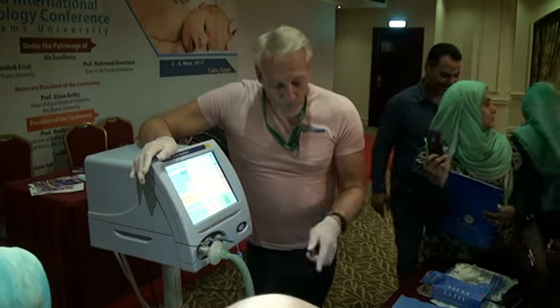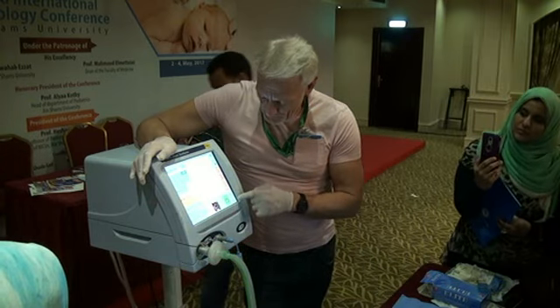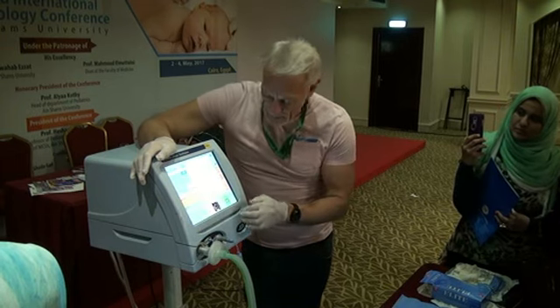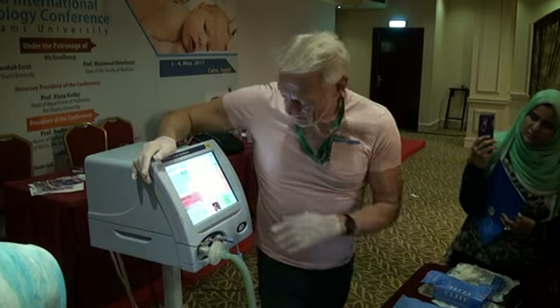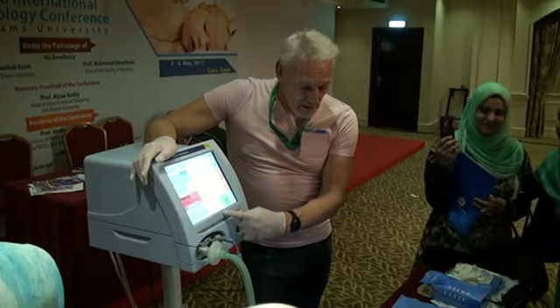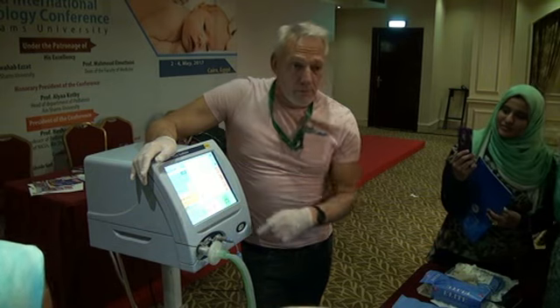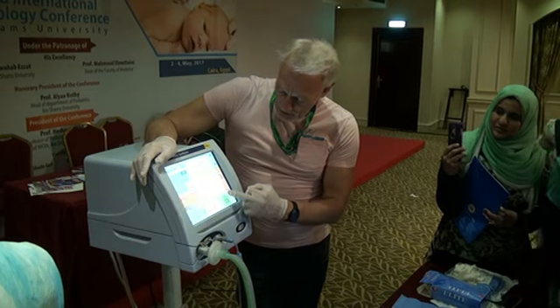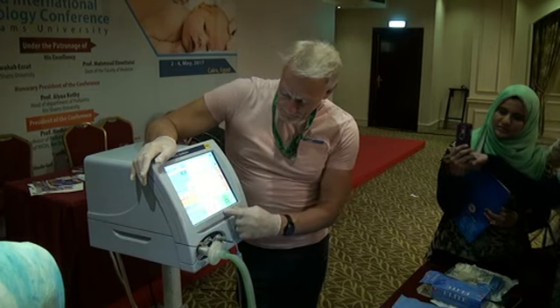Now, what if I overinflate this lung? What if I put this pressure up to 32? I'll get a warning, perhaps. What's going to happen? What differences are going to happen now by changing that pressure? I'm not sure this ventilator is going to be able to reach 32 with the compressor it's on. It's going to take longer to inflate. The curve will go faster. I'm going to try and inflate it for longer.